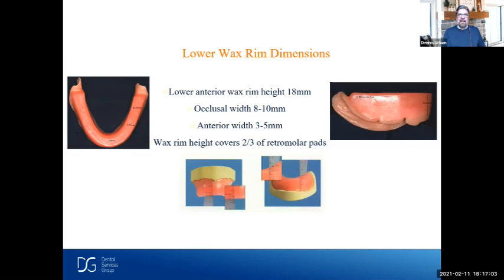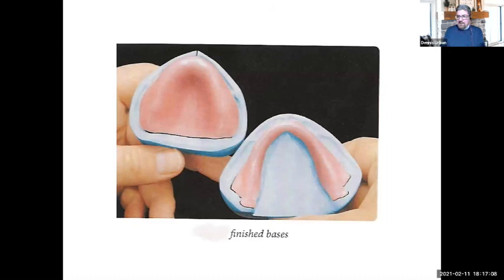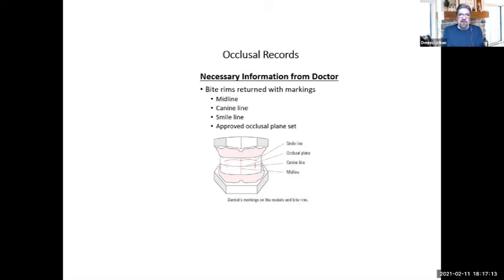Here is your finished base plate. It's a good review — it's nice when we get this information, but sometimes we don't get any information at all. I'm going to show you a setup I did when I didn't get any information from the doctor, and we had to use anatomical landmarks. We had a bite registration but didn't have the midline, canine lines, smile lines, and everything else needed to do a proper setup.